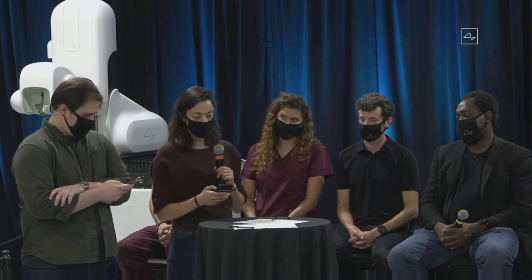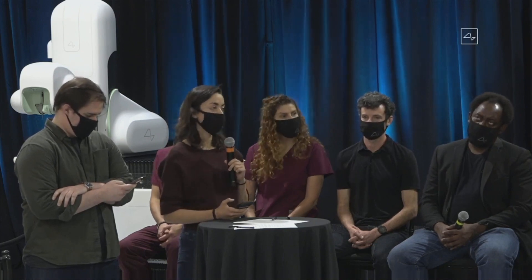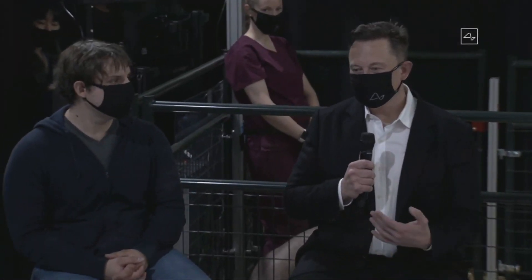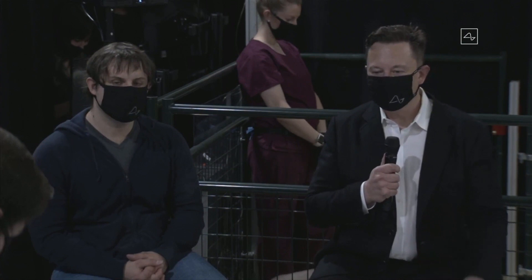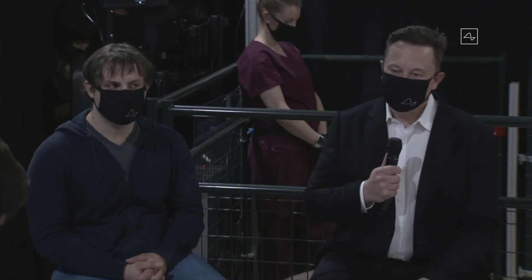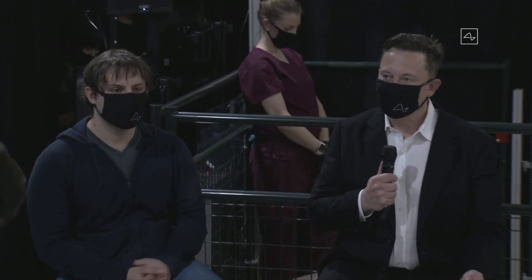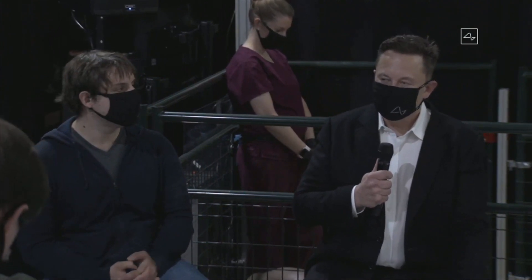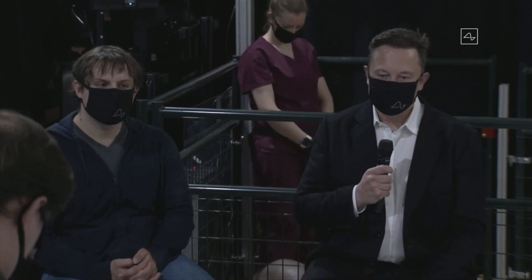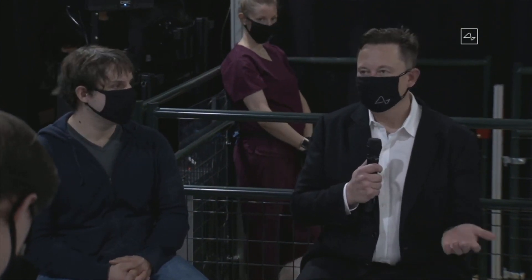A common theme from Twitter questions is availability. The question is: any estimate of how much it will cost at launch and what price it will reduce to over time? At launch it's going to be quite expensive, but that price will very rapidly drop. Over time, we want to get the cost down as low as possible. Inclusive of the automated surgery, we want to get the price down to a few thousand dollars. I think it should be possible to get it similar to LASIK. The device electronics won't be very expensive because it uses many parts made in extremely high volume — tens of millions of units — for smartphones.